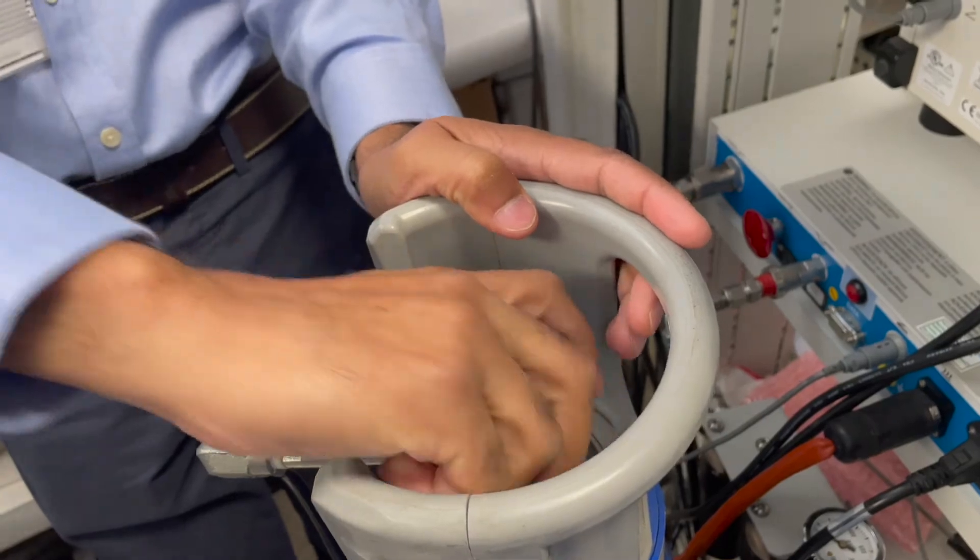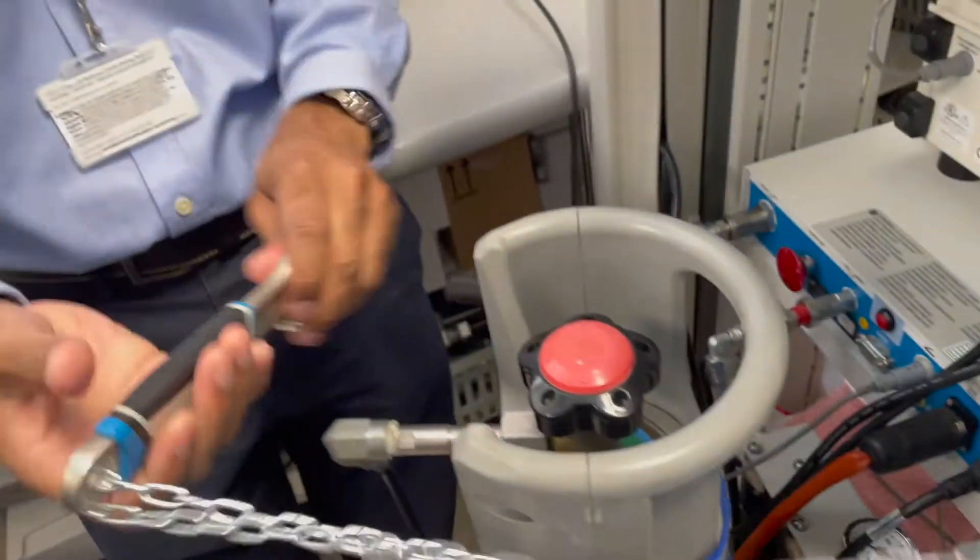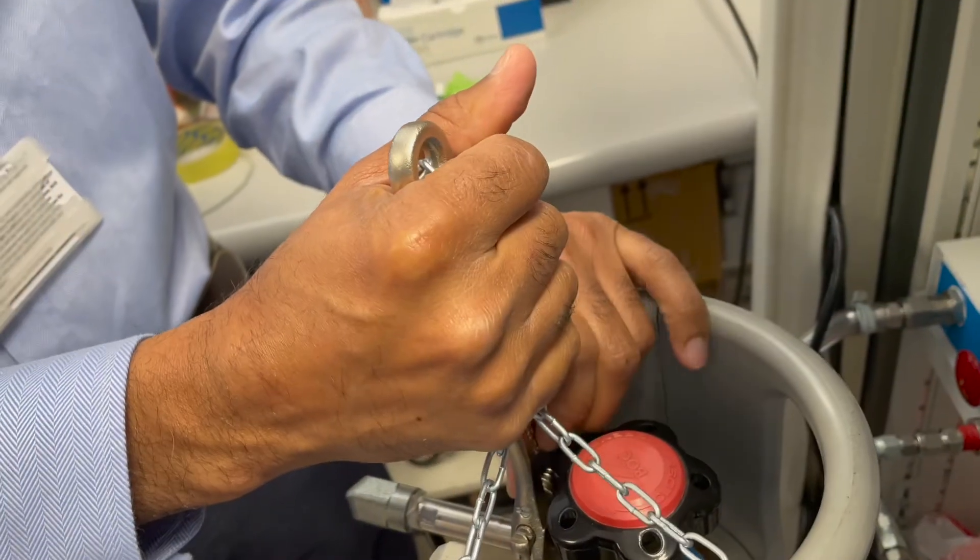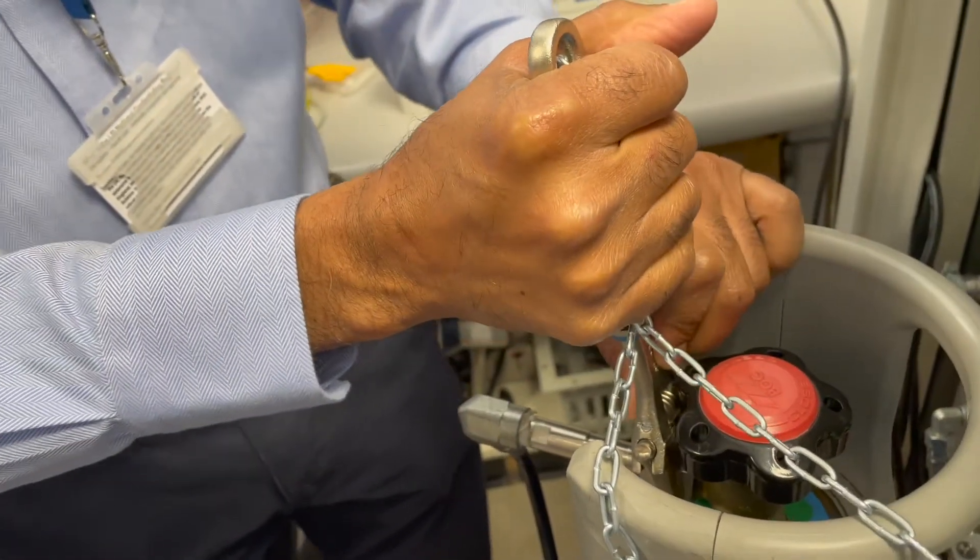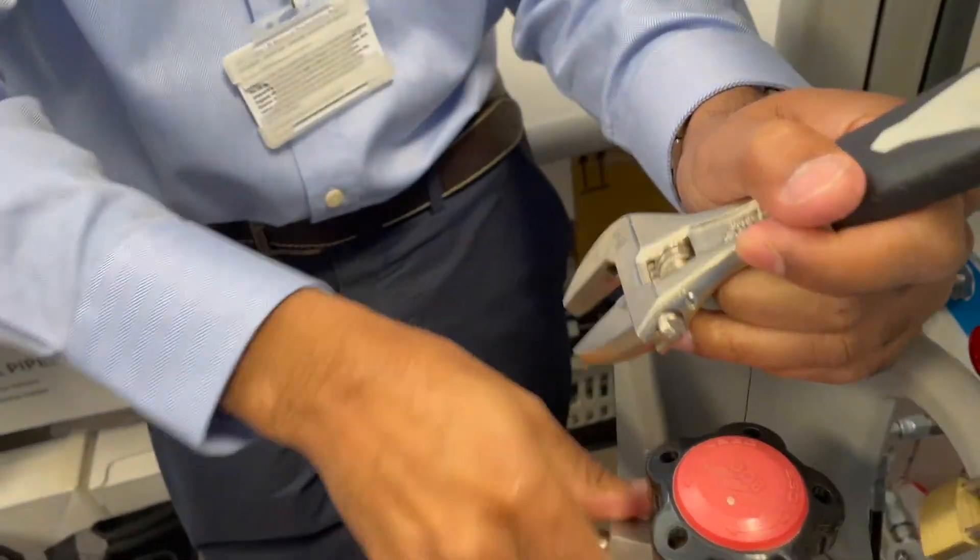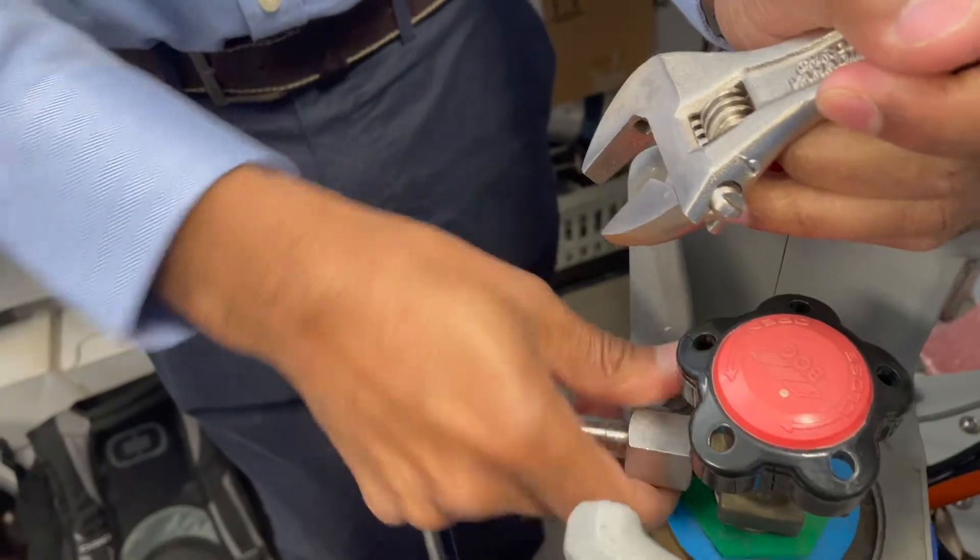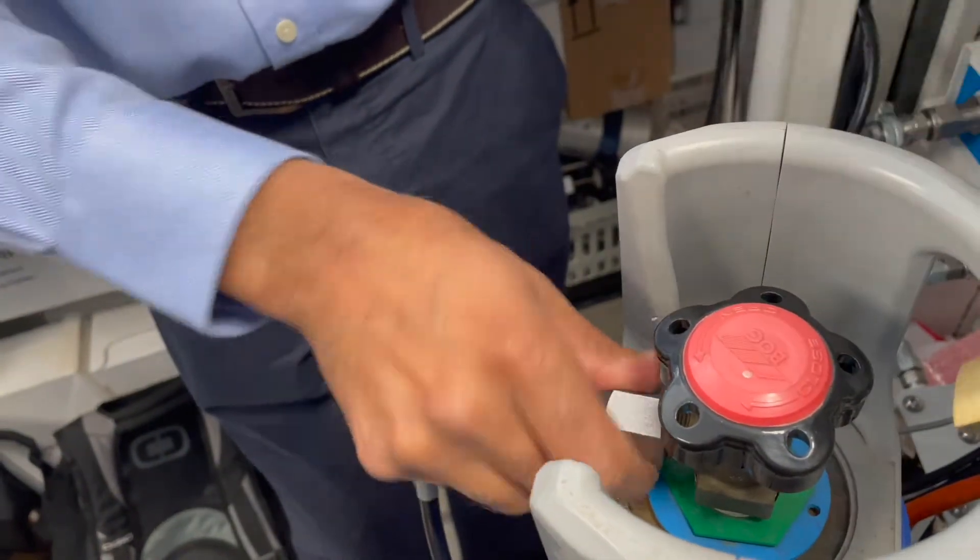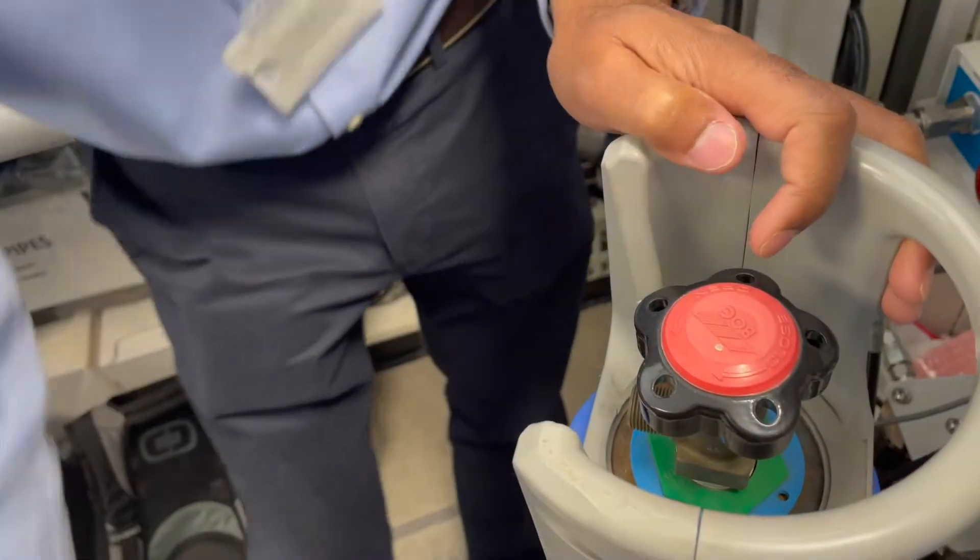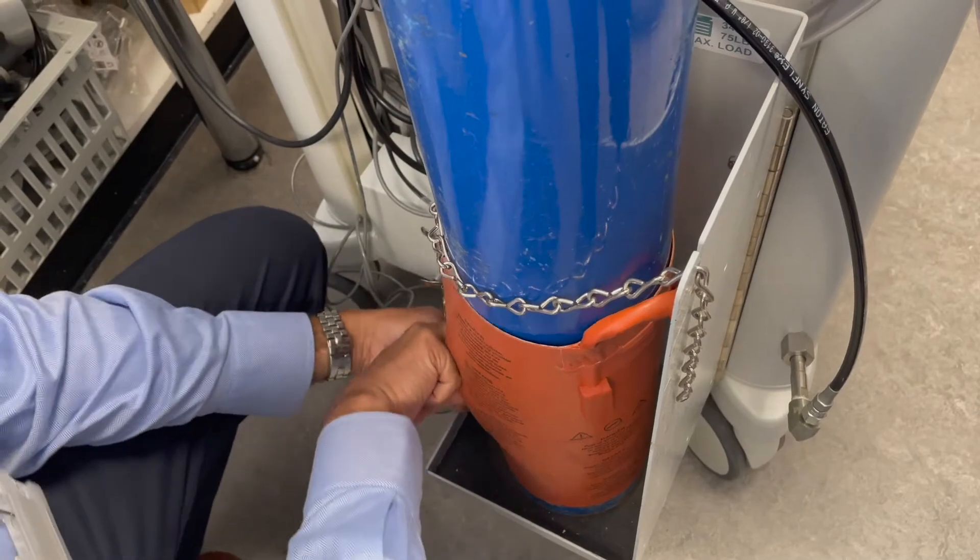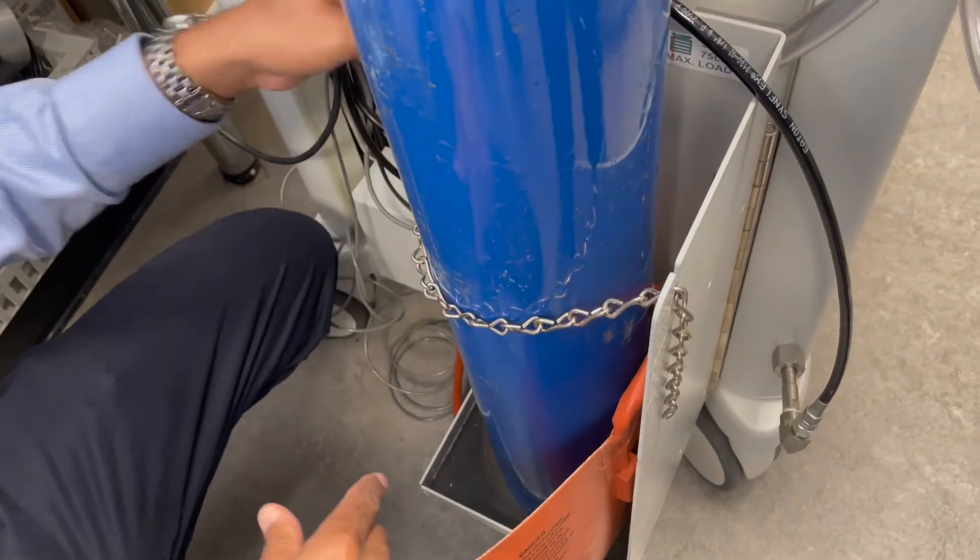Get your spanner which is here and undo it. It's a bit awkward because of the design of it but there's some residual gas because this is now shut off. Take this off once the coupling is off and take the warming blanket off.